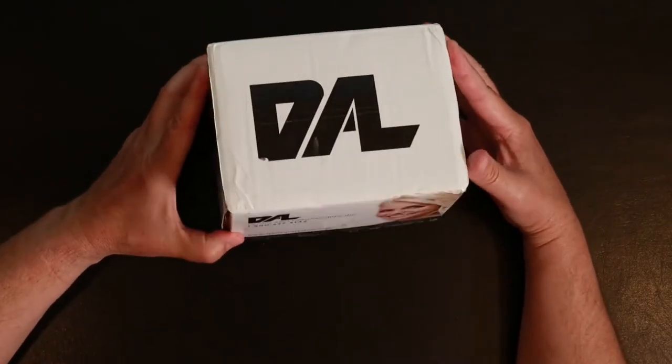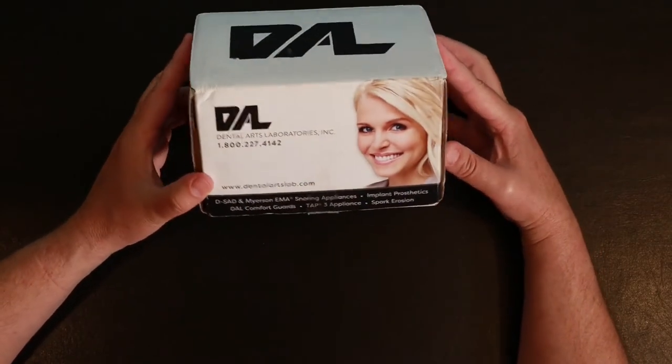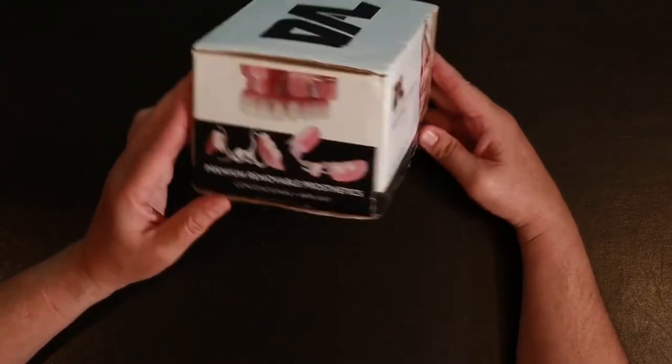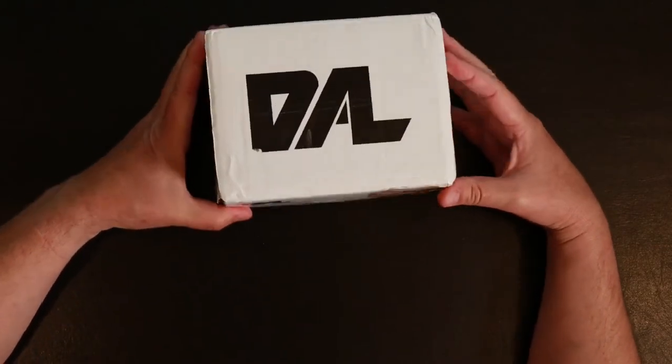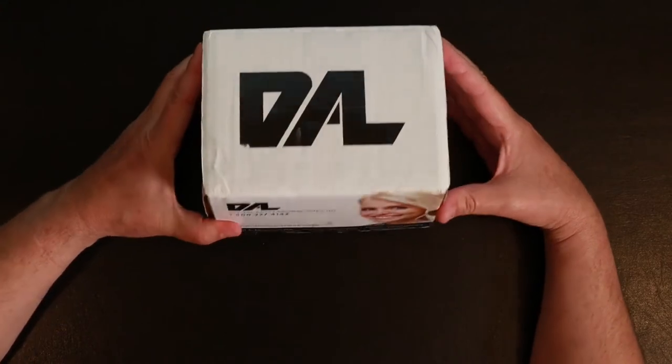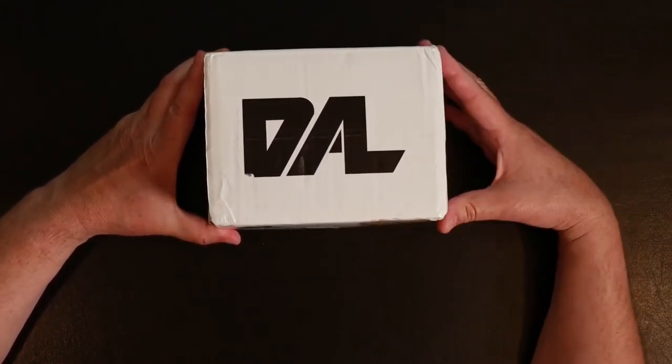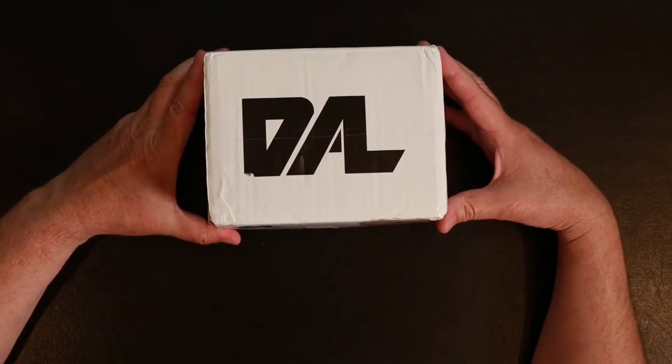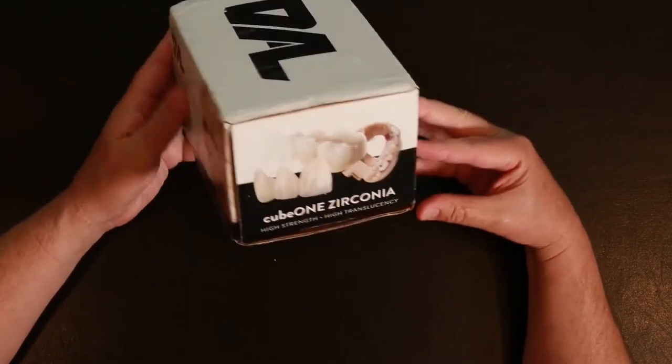I got the package back from the dental lab. I used Dental Arts Lab in Illinois and I sent them the impressions, the upper impression we took last time, the bite registration, and also I made a study model with the lower alginate that I took last time and I sent it to them and they sent me back the case. So let's open it up and take a look.